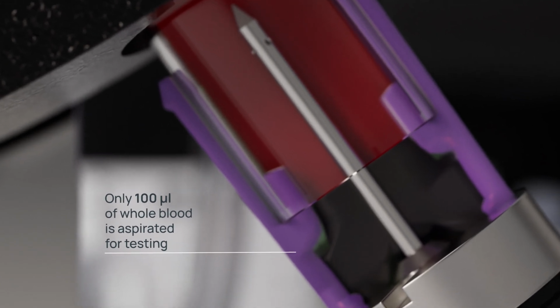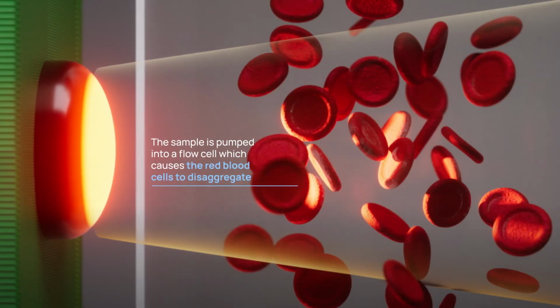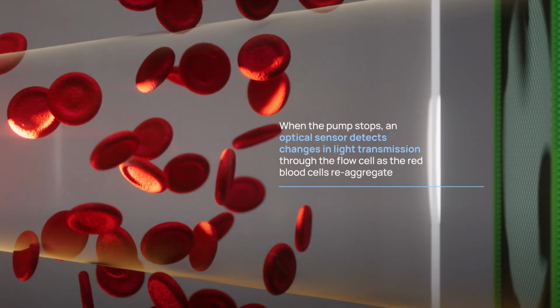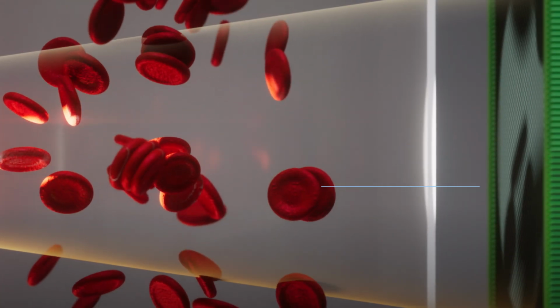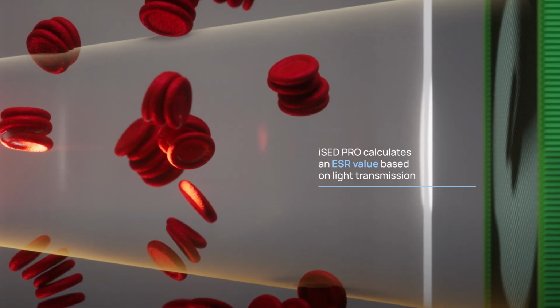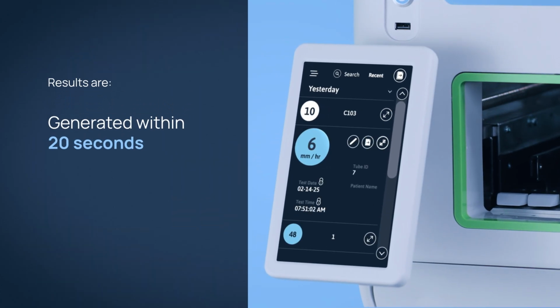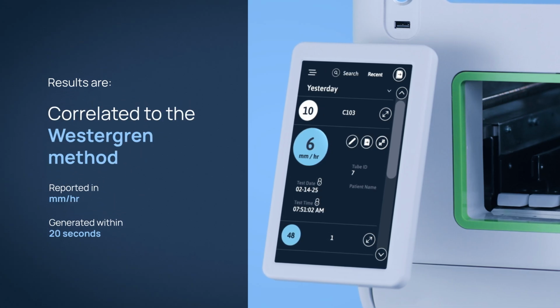The sample is pumped into a flow cell, which causes the red blood cells to disaggregate. When the pump stops, an optical sensor detects the changes in light transmission through the flow cell as the red blood cells reaggregate. iSED PRO calculates an ESR value based on light transmission. Results are generated within 20 seconds, reported in millimeters per hour, and correlated to the Westergren method.